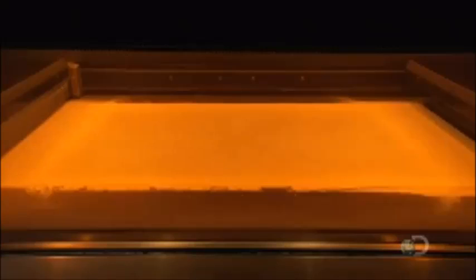The 3D printer applies a layer of powdered plastic, then, following the computer model, solidifies select areas with a laser. This process keeps repeating, building up the shape of these surgical templates layer by layer.